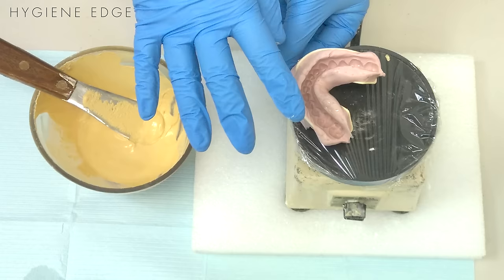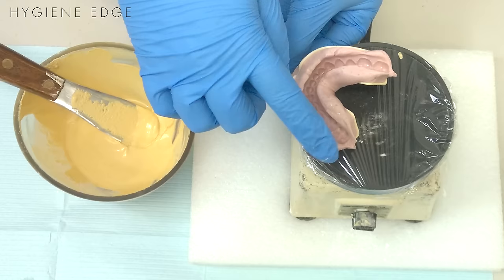You're going to start on one side of the U-shape of the teeth. It doesn't matter which side, but once you pick a side, you want to stay to it. You never add material to a new spot.